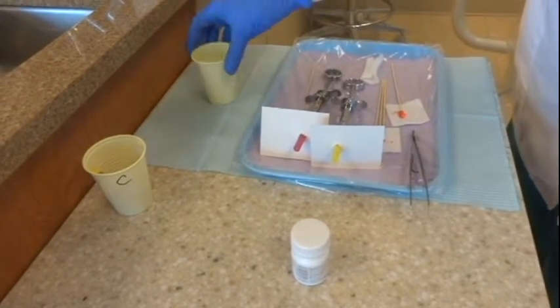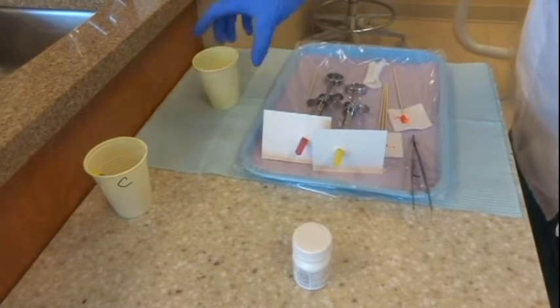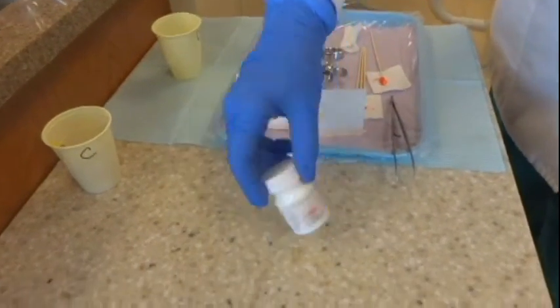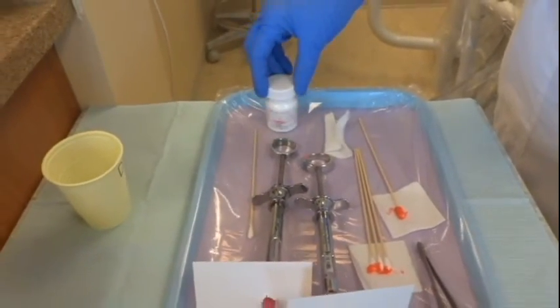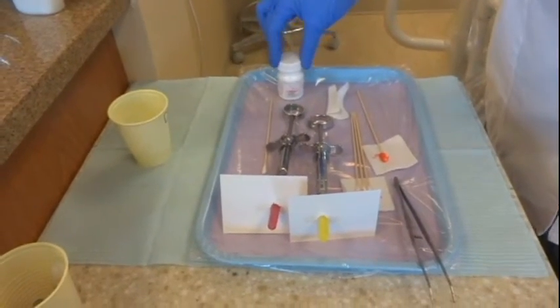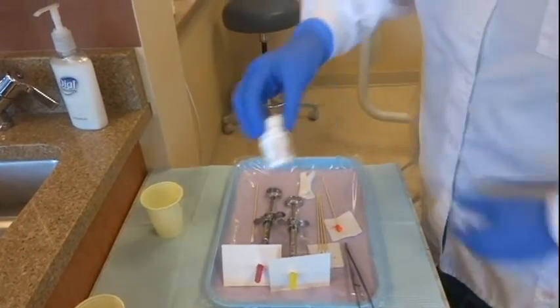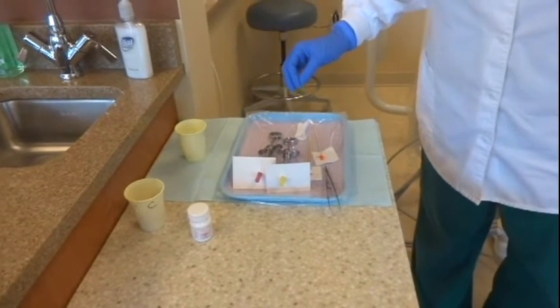When you're done using your cartridges, the empty cartridges and the used needles go in the dirty cup until you can get them into the sharps container. One other thing — the topical jar. I see this way too much, and I'm going to really emphasize it: you'll get marked down if I see the topical jar on your dirty tray. As soon as you put it on your dirty tray, it's contaminated — now it has to be wiped down, and there are grooves in it so it can't be wiped down very well. This needs to stay on the clean side at all appointments and during lab.